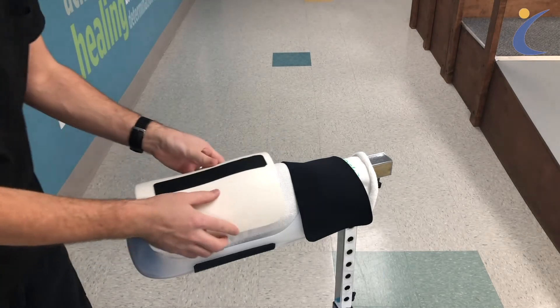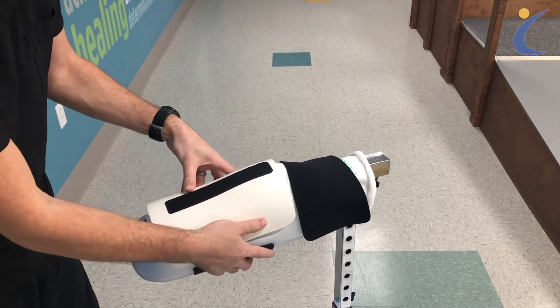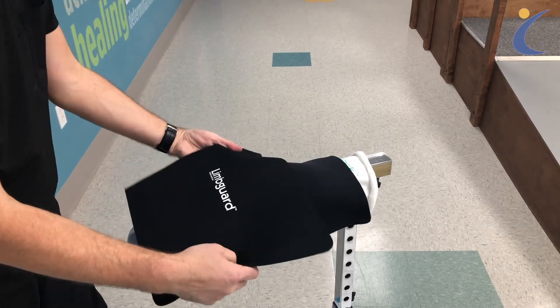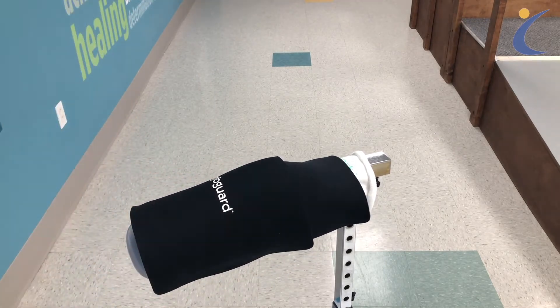Next, the white panel is placed on the front of the protector with the relief contour oriented up. This should be placed inside the outer shell so long as it's tolerable. Tighten the broad lower band across the front of the shell, gently pull down, and secure it against the Velcro.